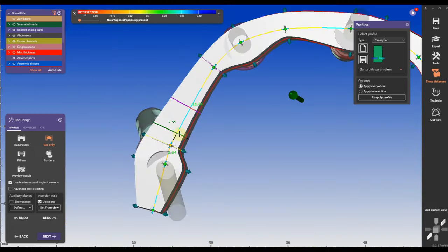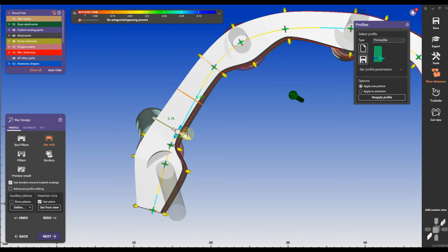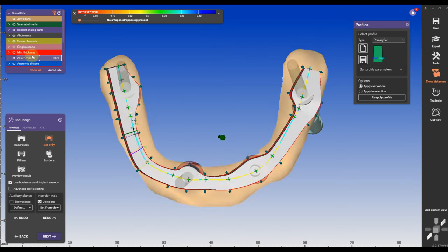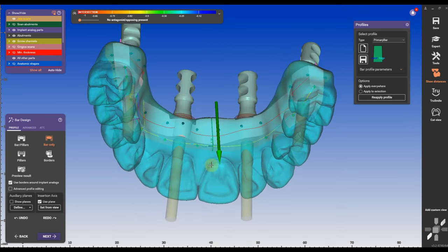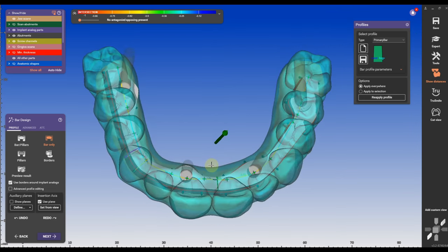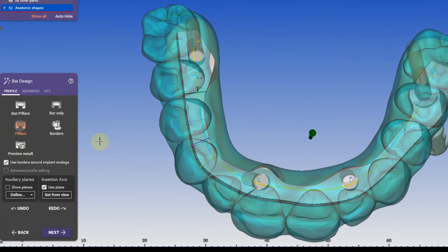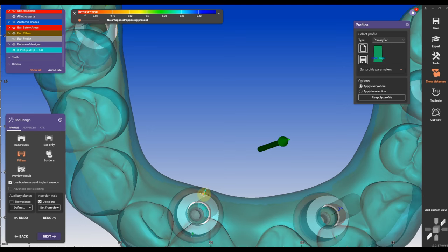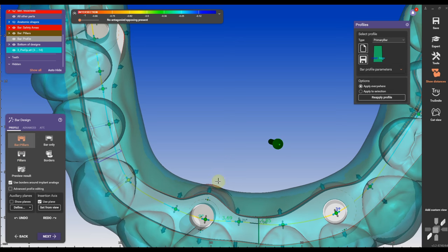So I'm going to make it as thin as possible, double check it with a pre-op scan so that there are no intersecting areas into the pre-op scan because that will create holes later on in the zirconia or the denture.